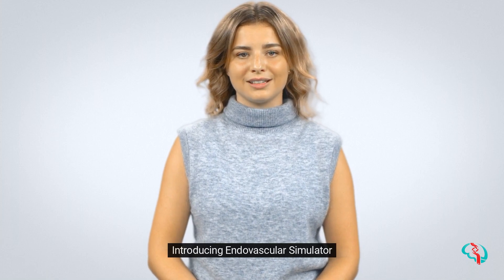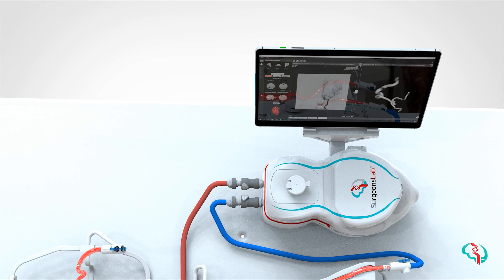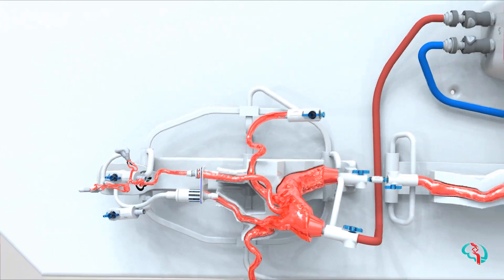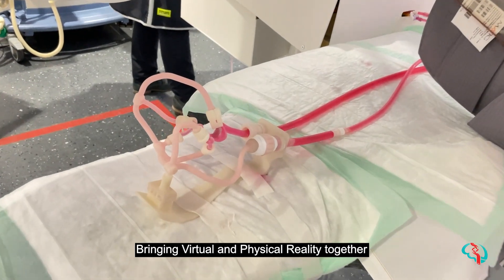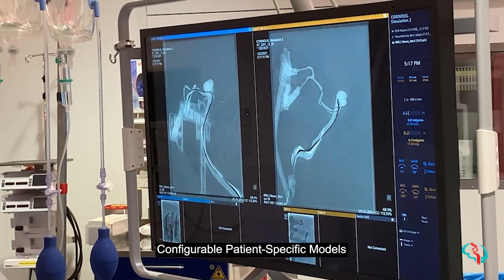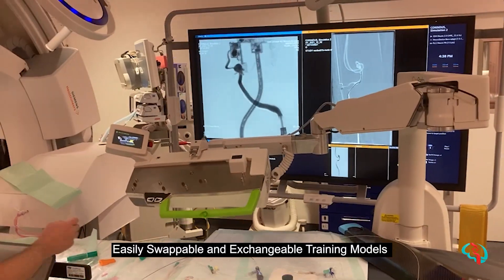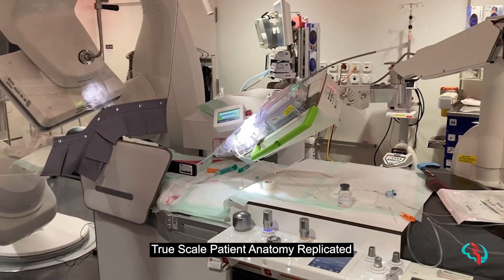Introducing the Endovascular Simulator — bringing virtual and physical reality together. Featuring configurable, patient-specific models that are easily swappable and exchangeable, the simulator replicates true-scale patient anatomy for realistic training.